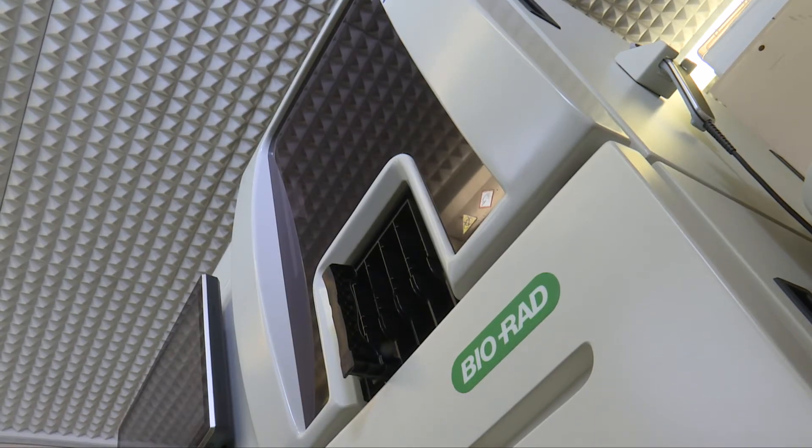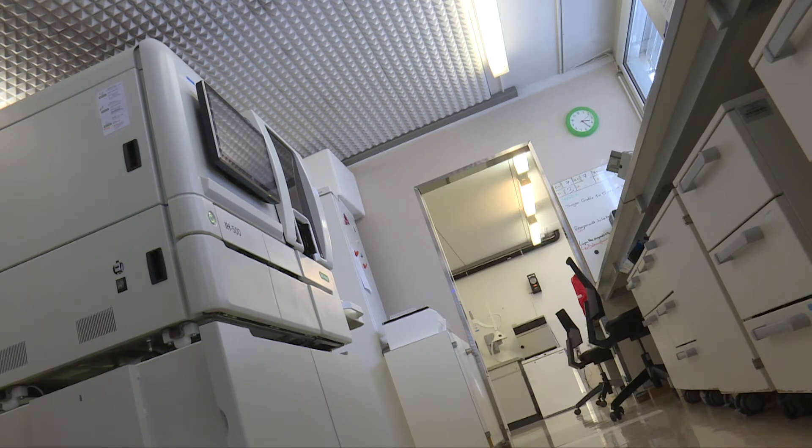We have now been working with Bio-Rad for 19 years. It's become a really enduring partnership, which is set to reach 25 years soon, a quarter of a century. It has been built on trust, responsiveness, and the ability to rely on people who listen and instruments that meet our requirements.